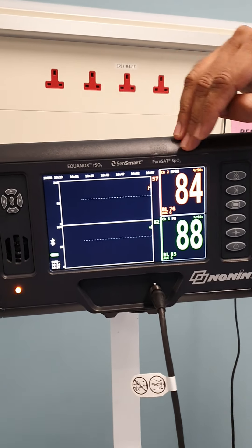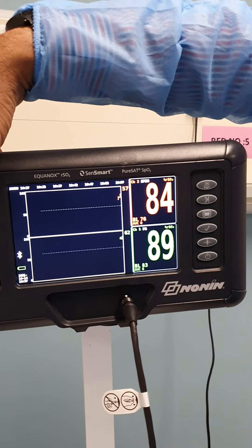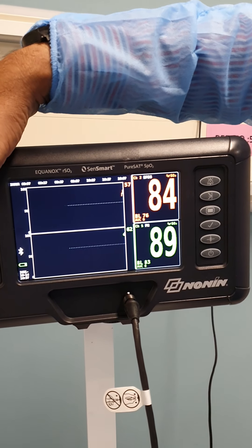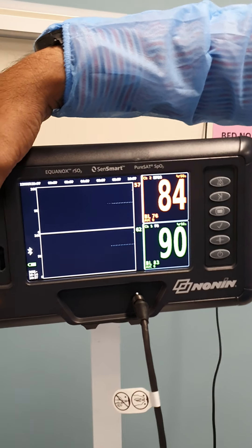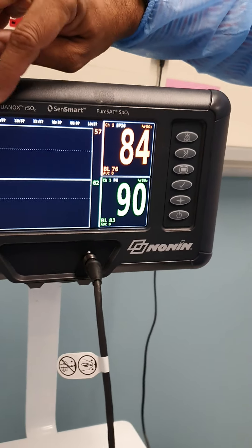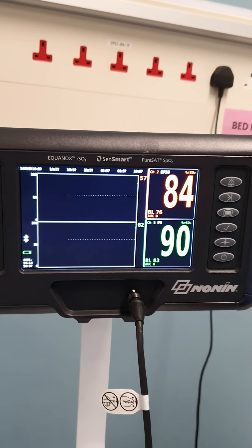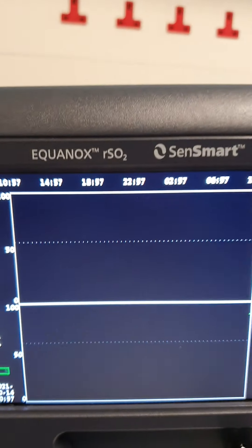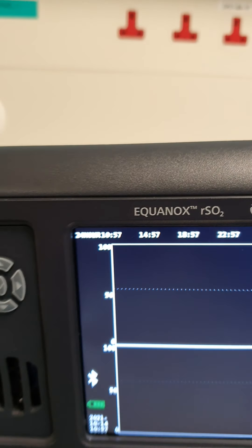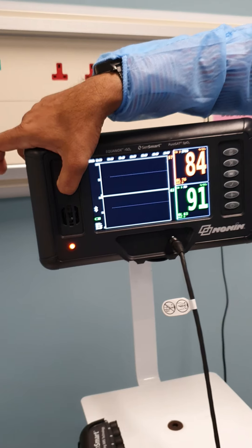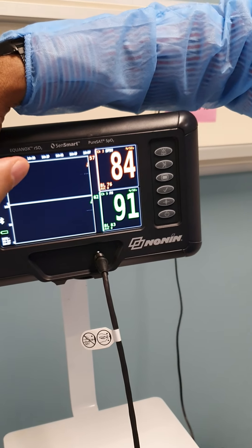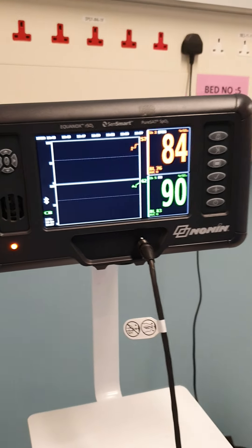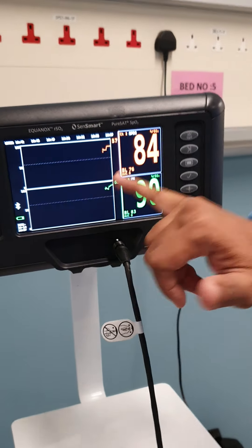Now on the screen, you can see 30 minutes. I can change that screen size up to 24 hours. So 12 hours - how are you changing? By using this. So now it's 24 hours. It's compressed. In one screen I can see what the situation is. I don't have to go here and there. With this single screen you can have the analysis of 24 hours. Right now I'll make it 15 minutes. This is the home screen. You can see I've made it 15 minutes. You can see the changes.